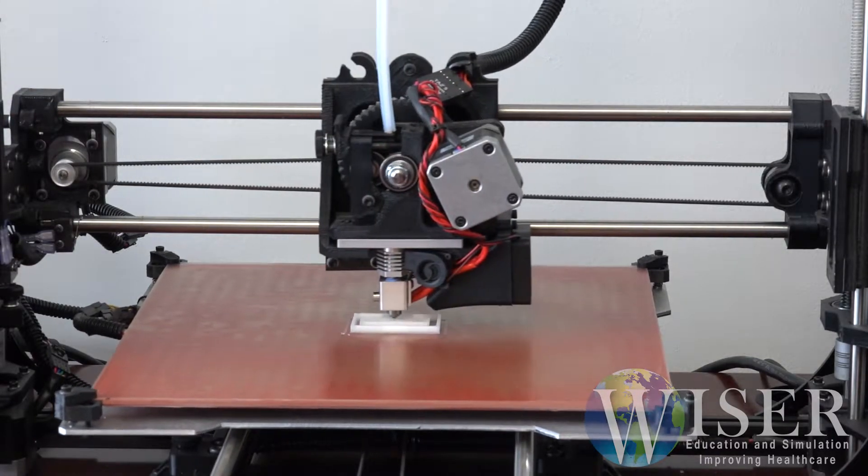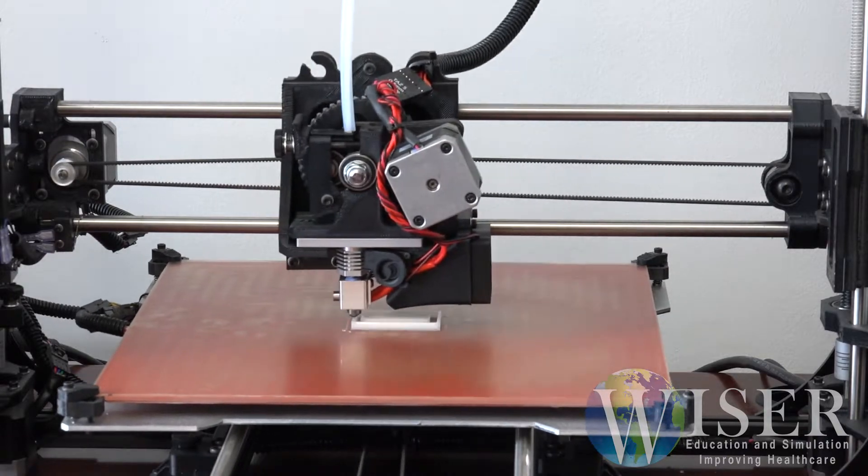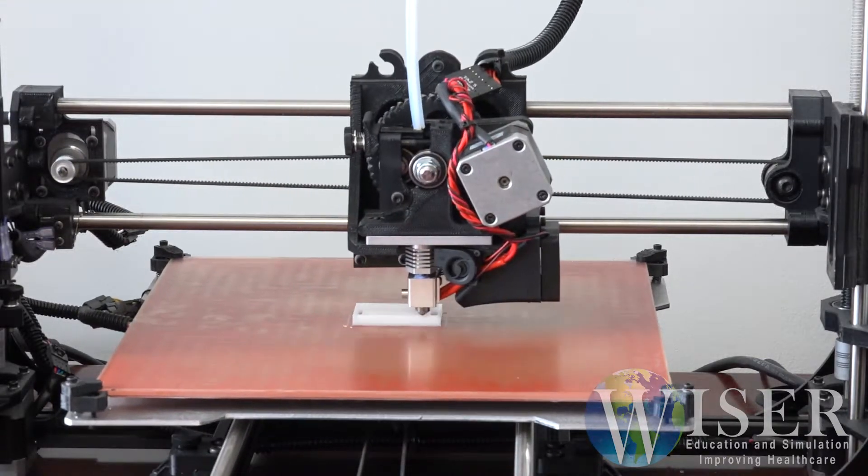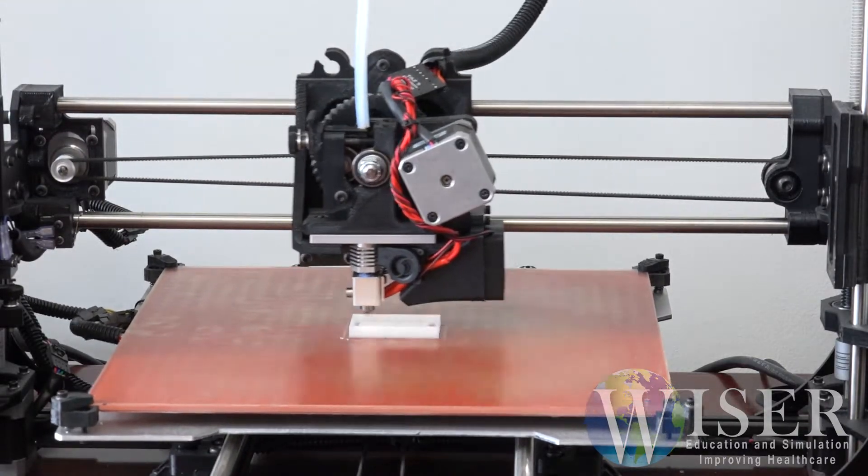3D printing technology allows this task trainer to be made any size desired and have additional features, such as a tab to clamp to the table.